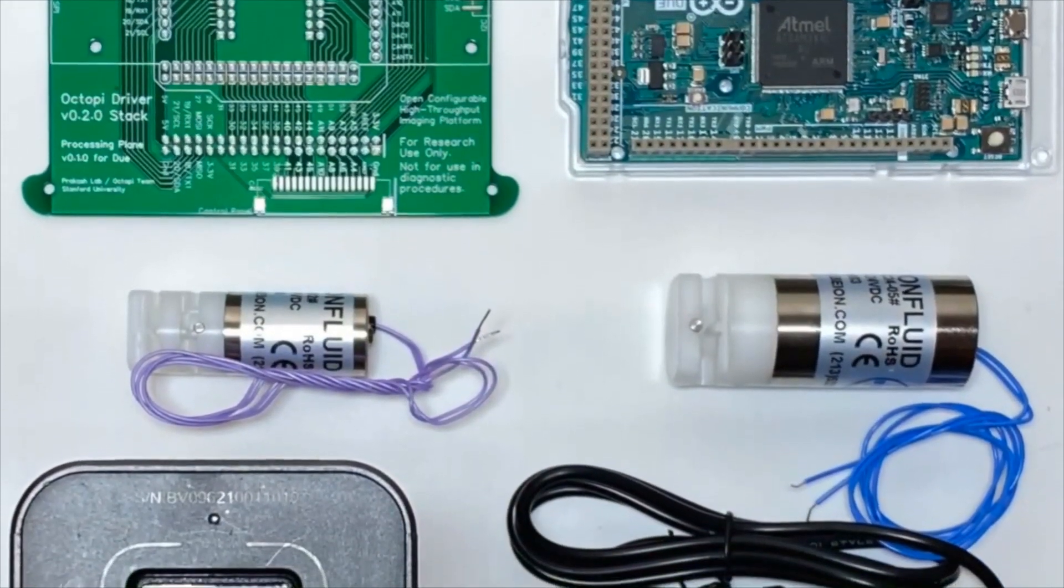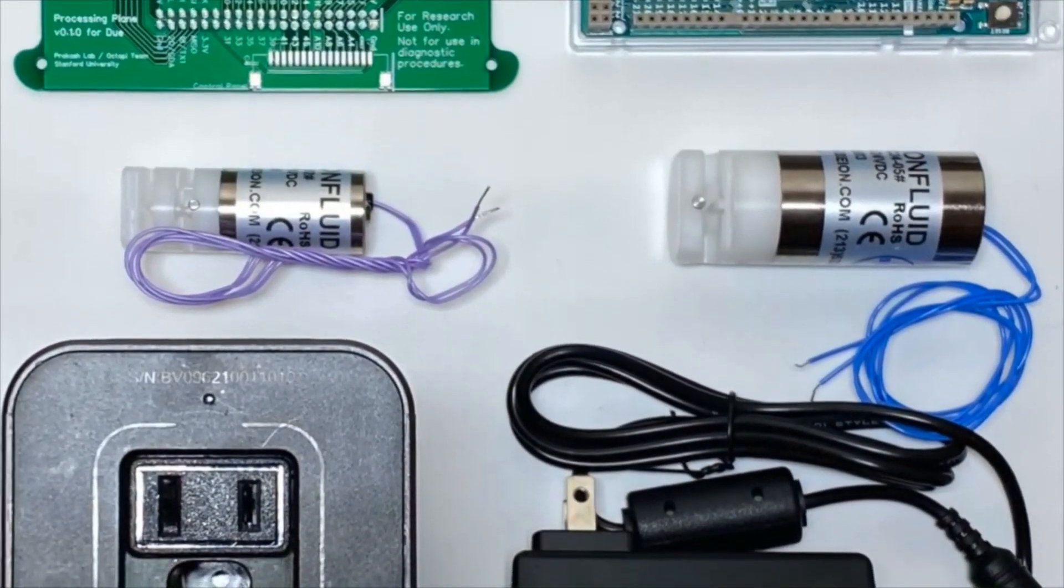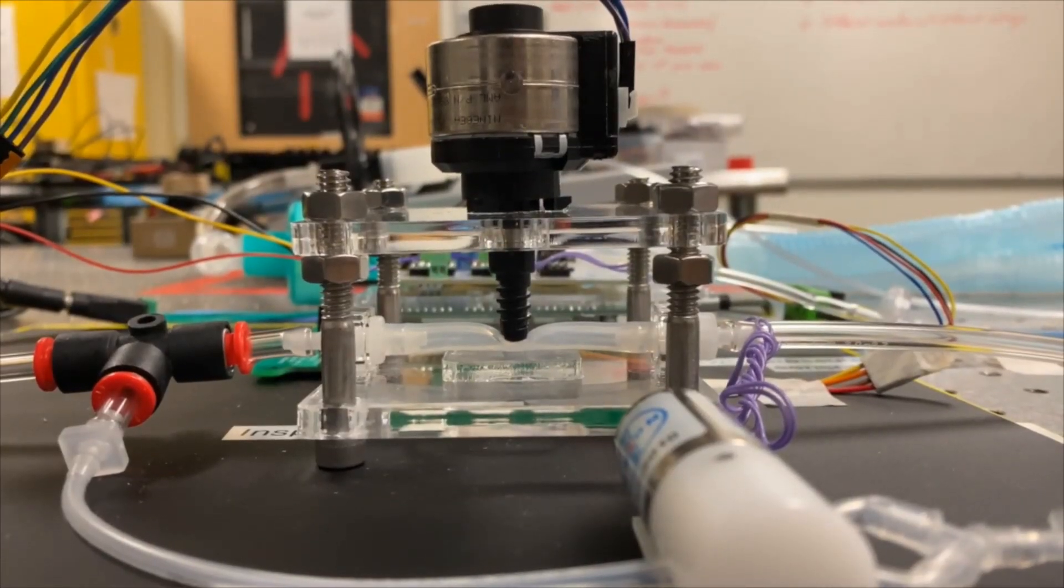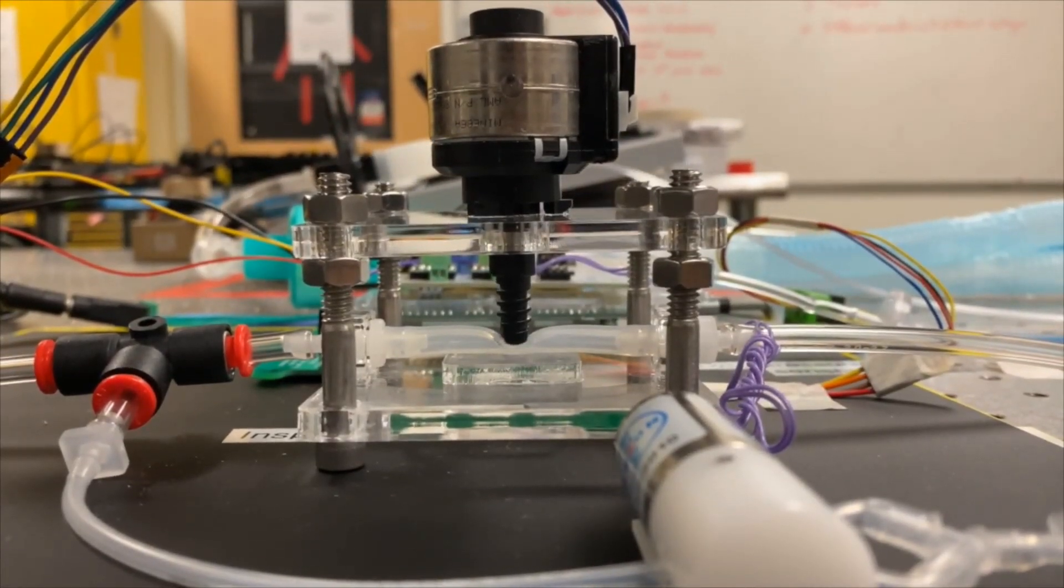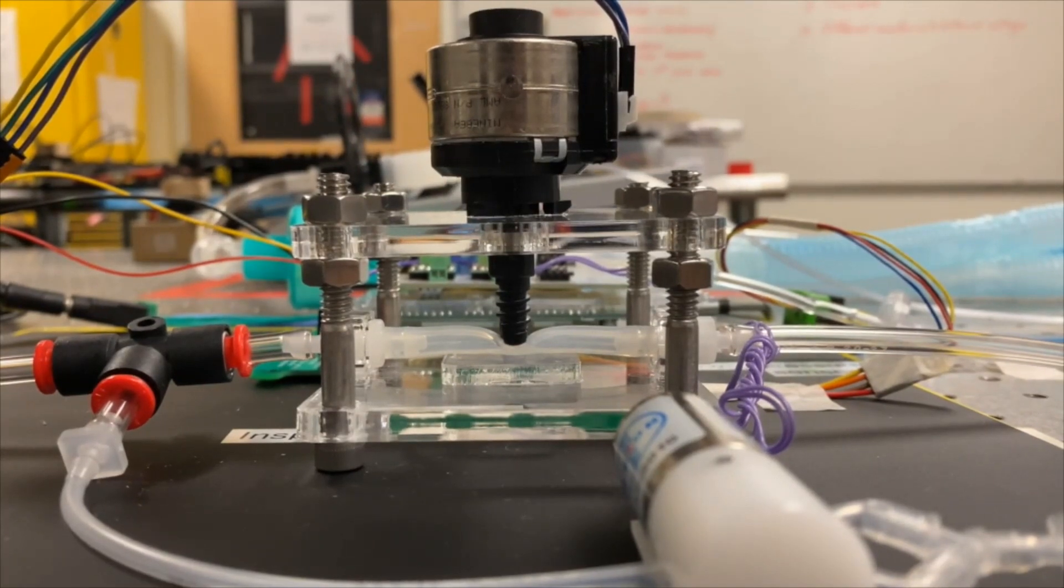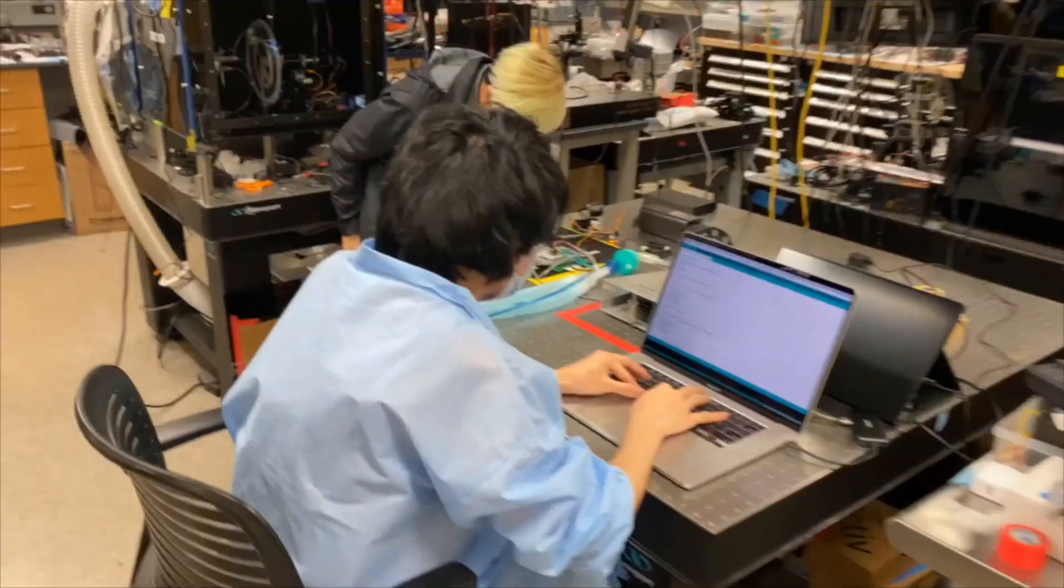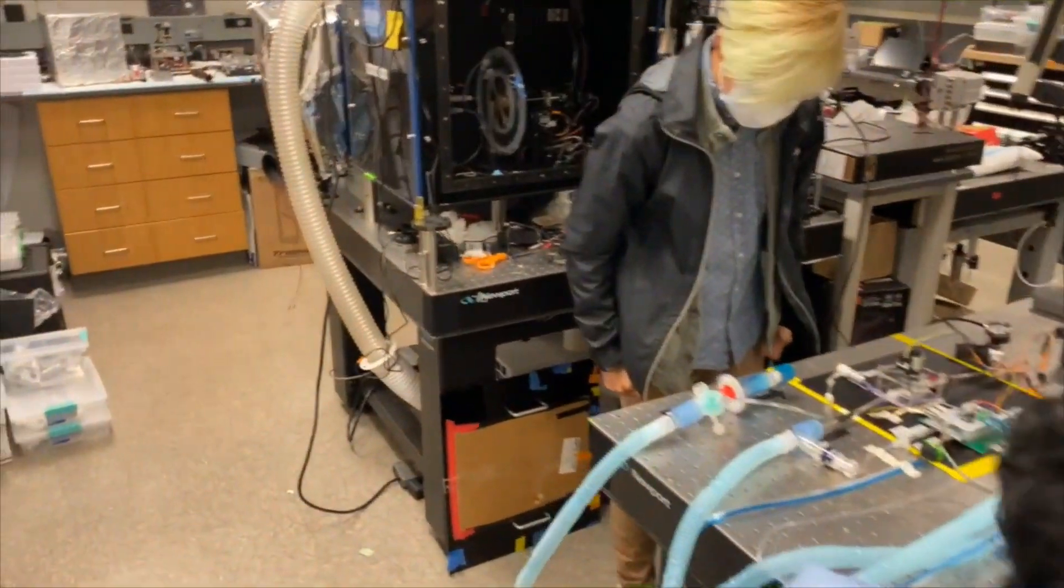Including the solenoid valves or, for example, proportional pinch valves that allow us to swap parts back and forth such that if a single supply chain in a given country is not accessible, somebody could still build a ventilator by swapping the parts.